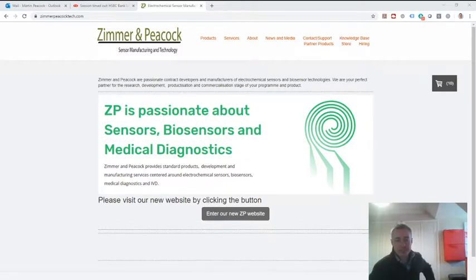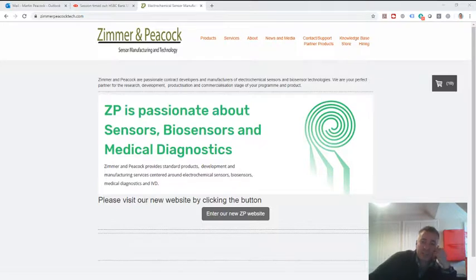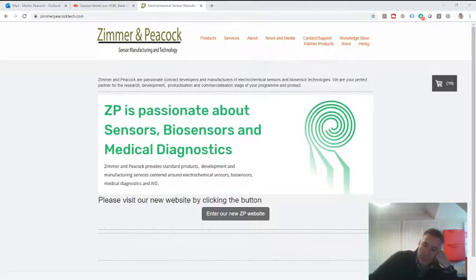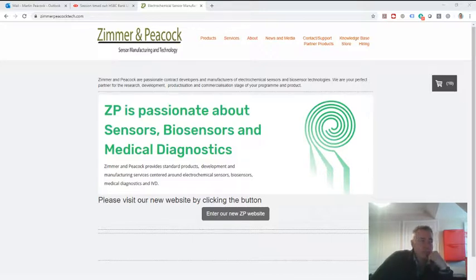Okay, so this is a quick video about our sensor platform suitable for things like sweat analysis or maybe suitable for microneedles or maybe suitable for transdermal sensors.